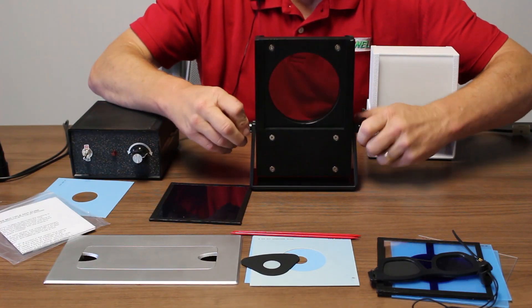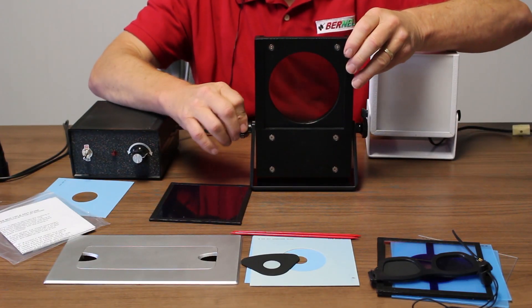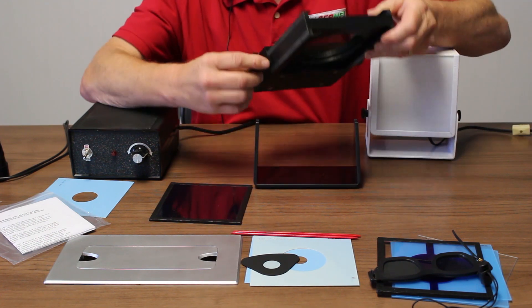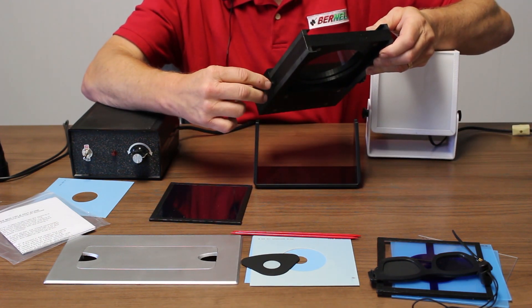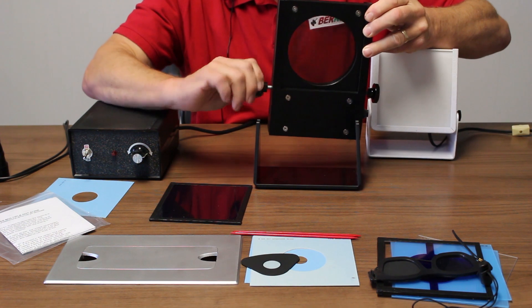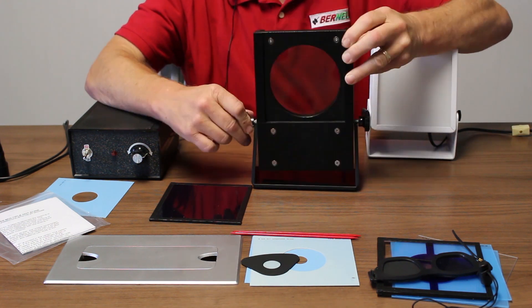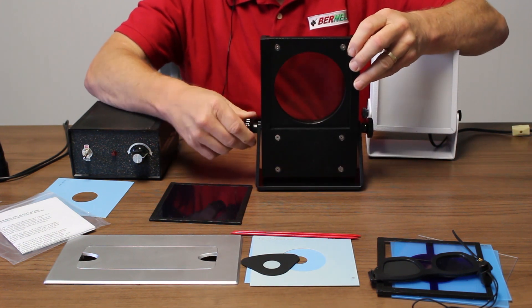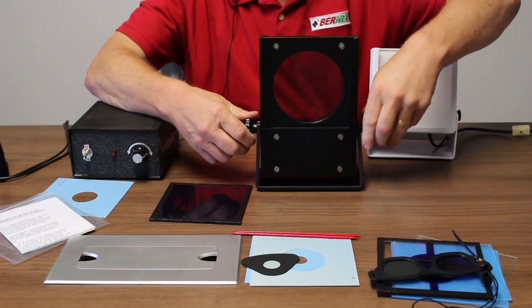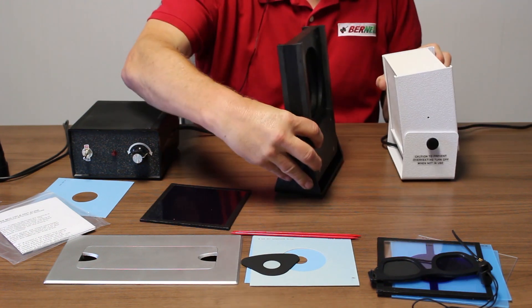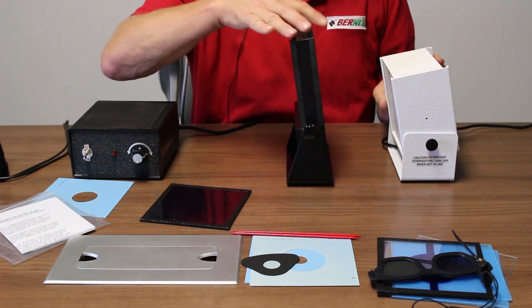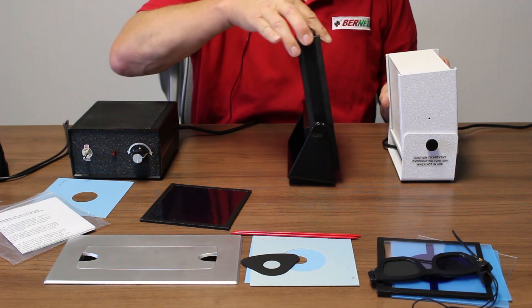You want to unpack the MIT motor and rotating Polaroid assembly. These are just thumb screws that you have to put in there that are used to tighten it on here. It just sits on here like so. You're going to want it at a slight angle that matches the angles of the MIT, and you adjust this for the height of the patient.